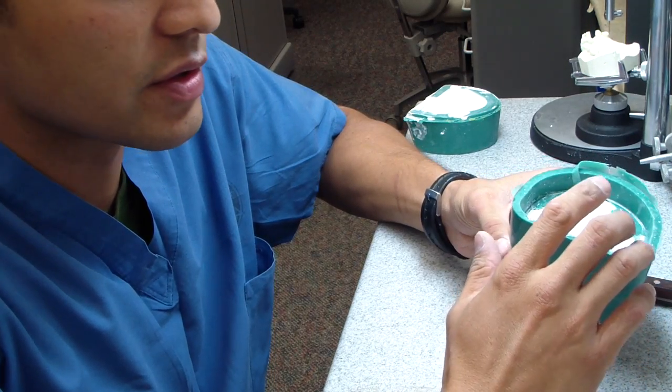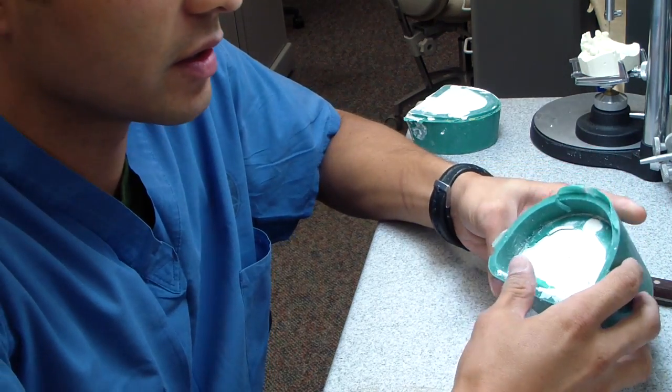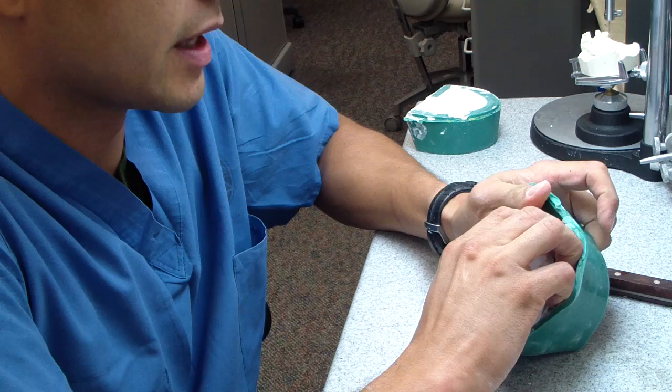You can use alginate, you can use any polyvinyl siloxane, many other materials. This is just one way a lab would do this.